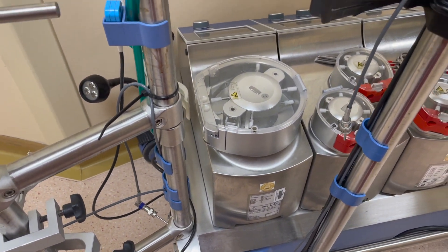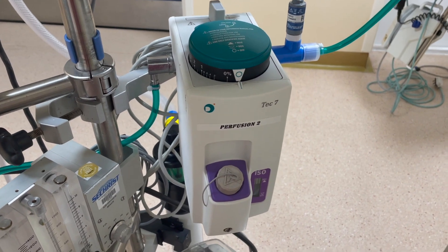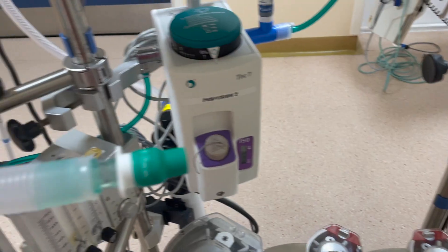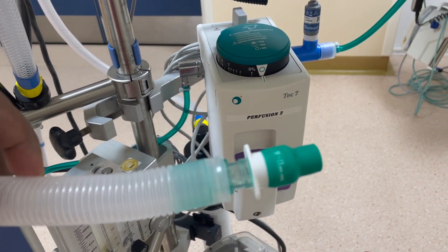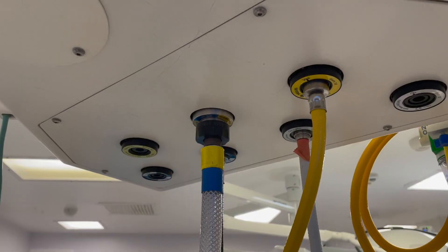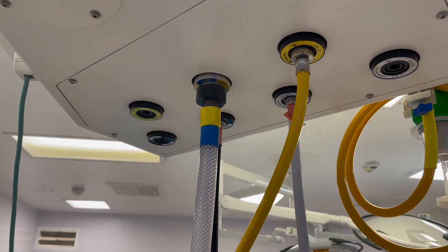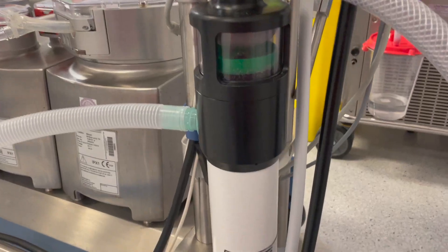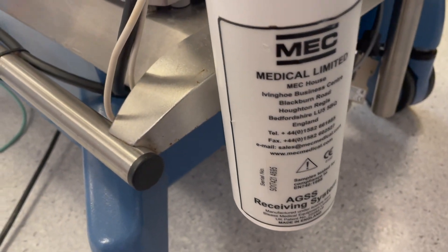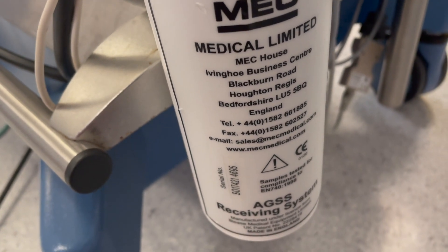It is extremely important to minimize any leak of isoflurane vapor. Waste anesthetic gas must be scavenged through active means. Active scavenging involves an active airflow system that draws waste anesthetic gas away from the oxygenator outlet into an in-house waste anesthetic line.